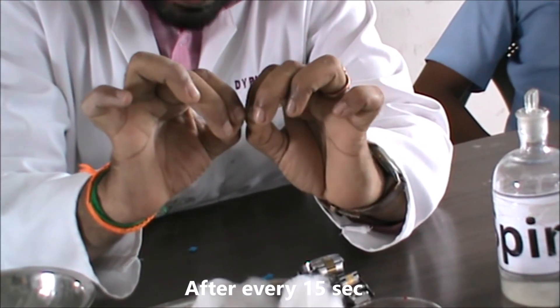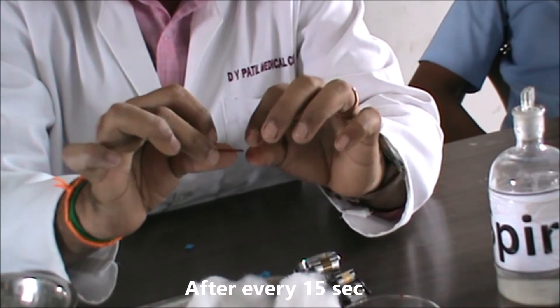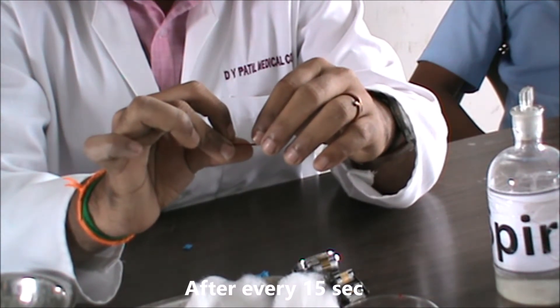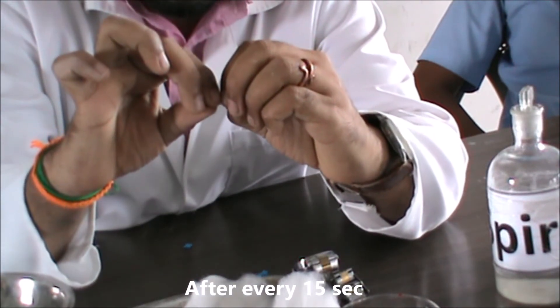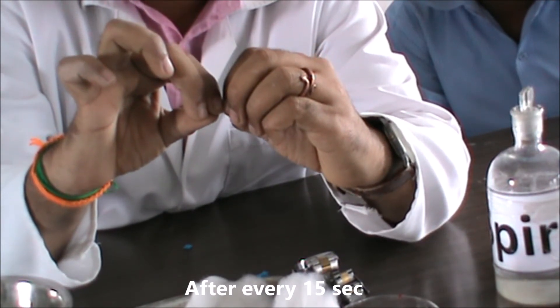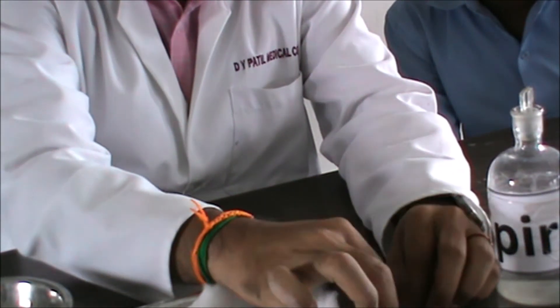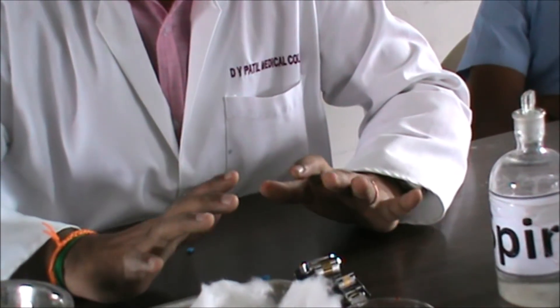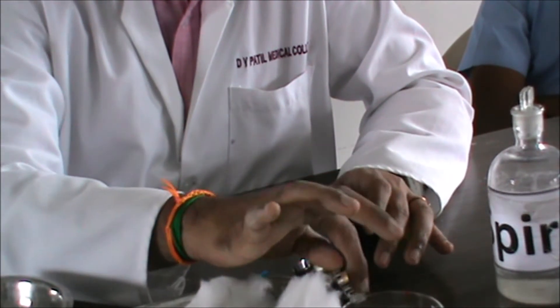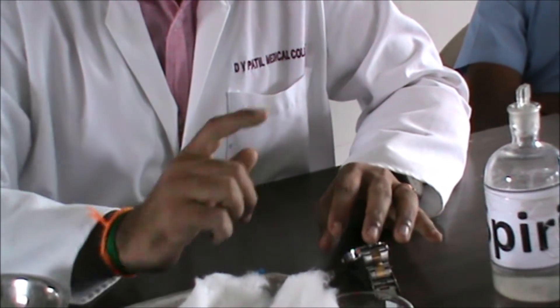Now going to the fourth break — let's check if the fibrin thread appears. It is not coming yet, so we wait. On the fifth break, I have caught the fibrin thread. It is very difficult to show on camera but I will show you in picture form. Whoever is available in the laboratory, report immediately. Once completed, note down how many pieces you got: one, two, three, four, five pieces. I will show the calculation now.